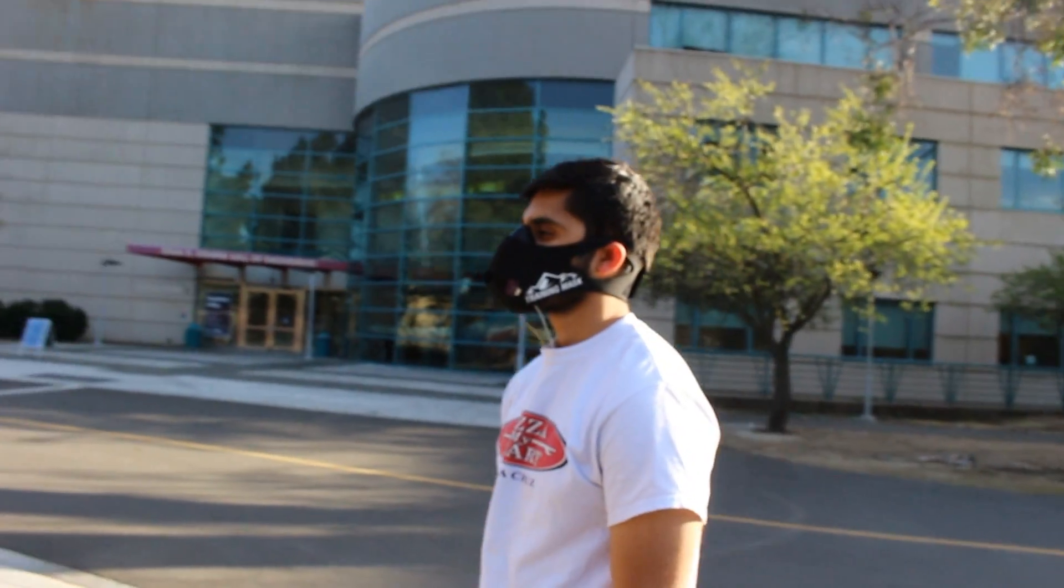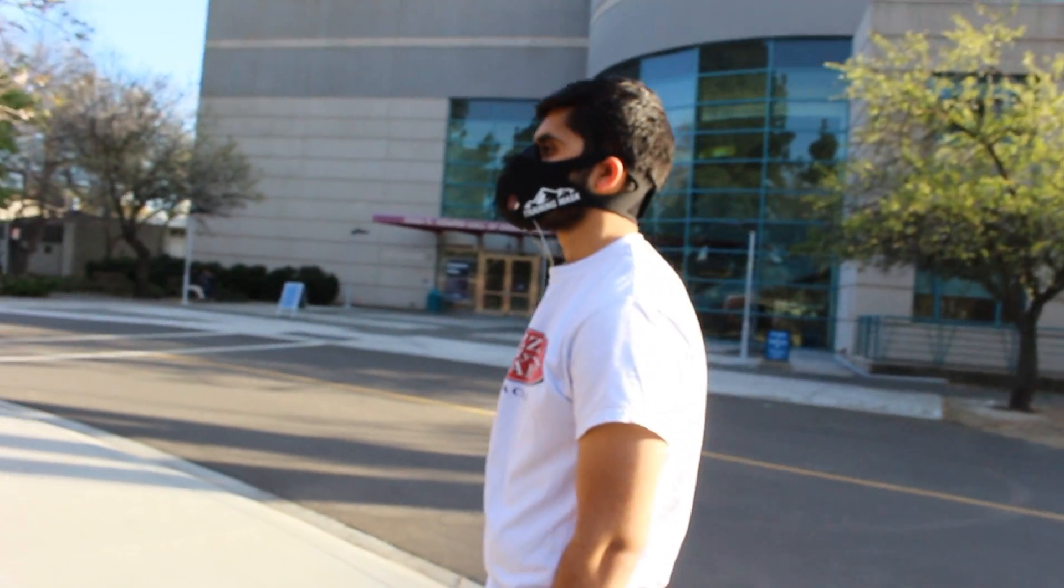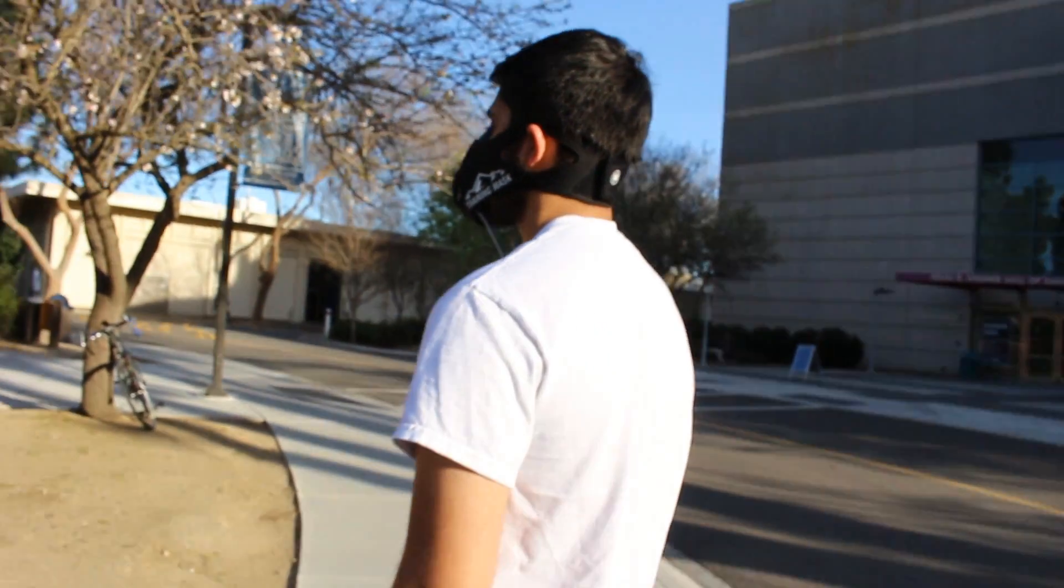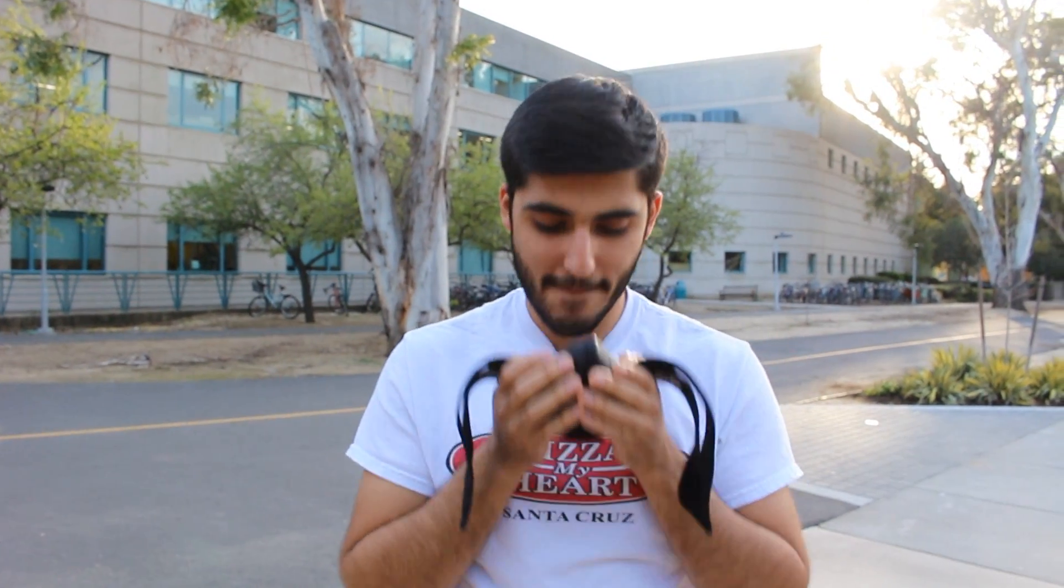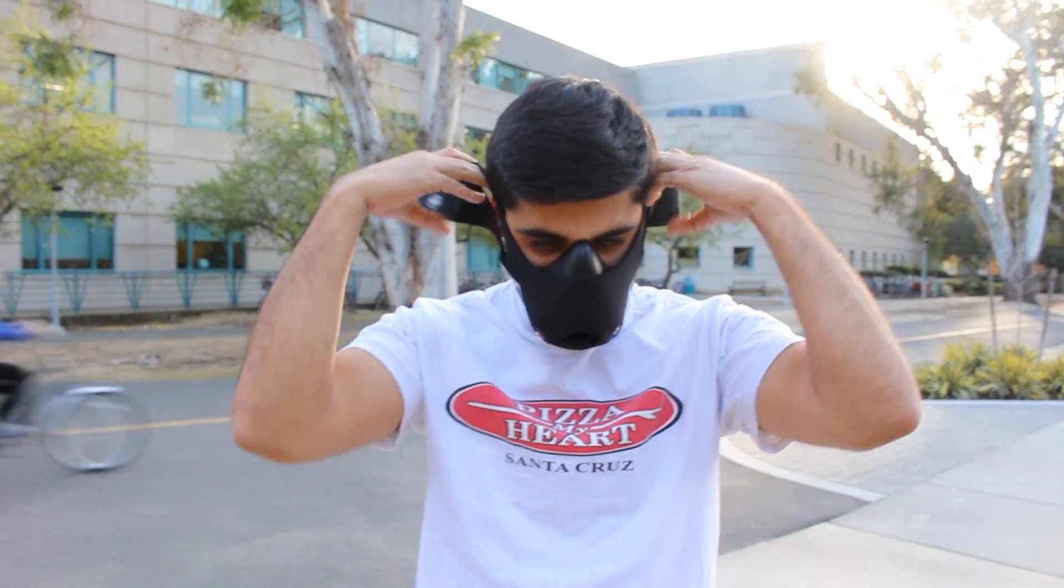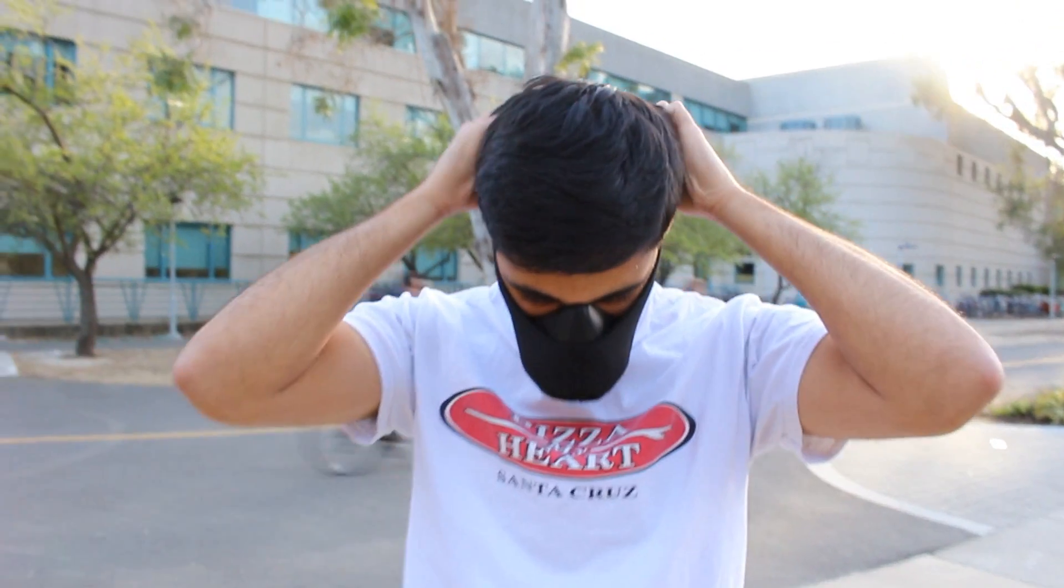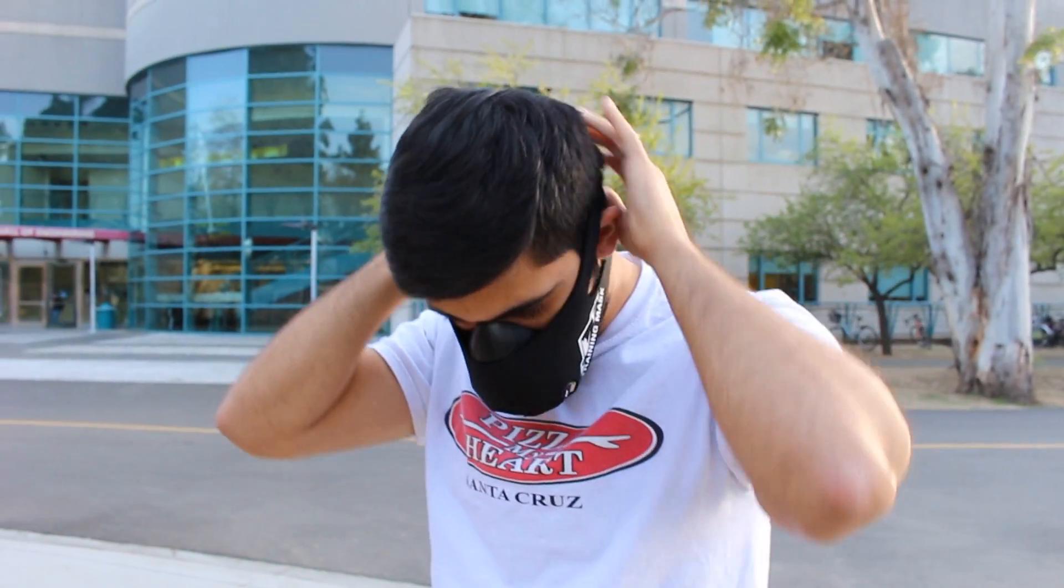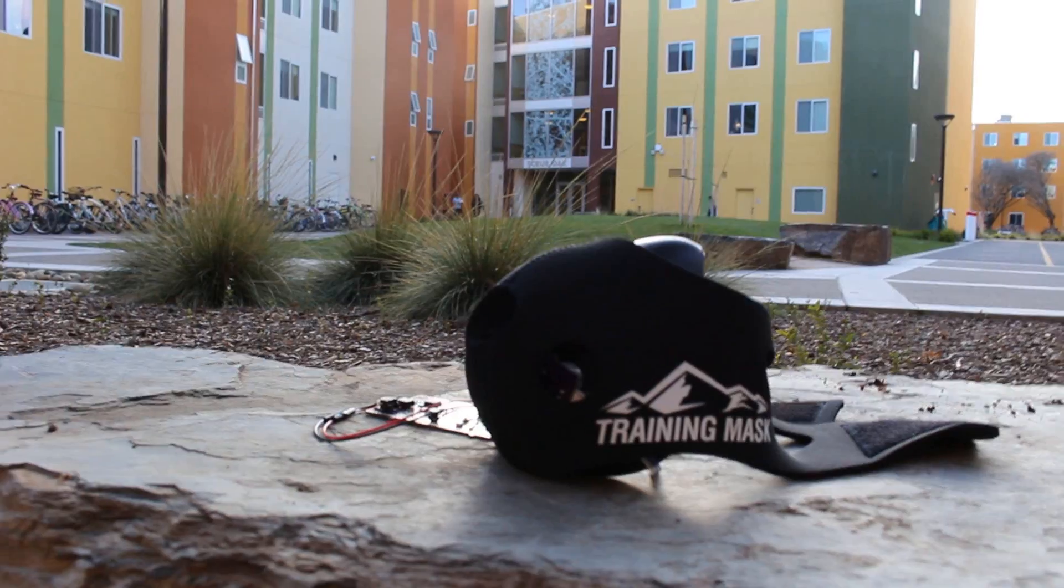Uku was born as a research project for a doctor at UC Davis Medical Center. Dr. Brown would love to perform better preoperative risk assessment for her lung resection patients with the use and development of Uku. She finds current testing measures to be inconvenient and inaccessible for many of her patients.